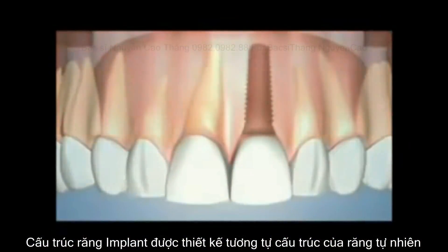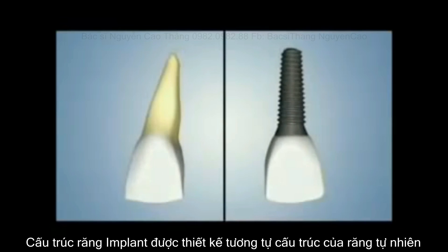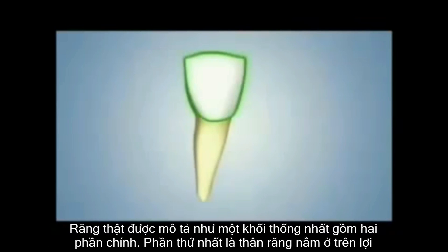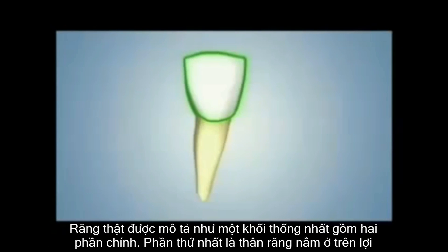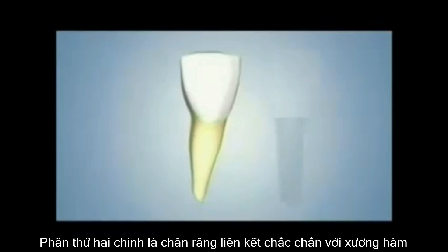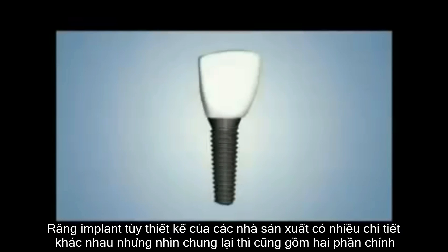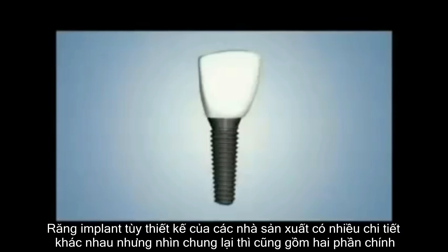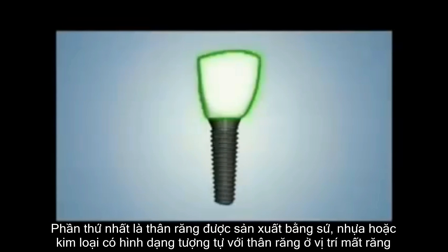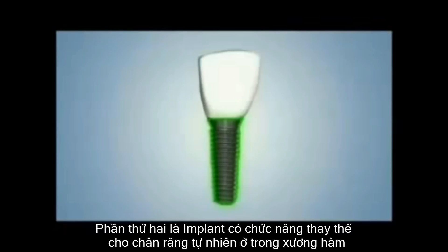The design of a dental implant is based on the design of a natural tooth, with two main parts. One part is the crown that sits above the gums. The second part is a root that sits securely in your jawbone. A dental implant treatment may involve several pieces; however, it may also be described as having two main parts: a restoration custom fabricated to match the shape of a natural tooth crown, and the implant that replaces the function of a natural tooth root.